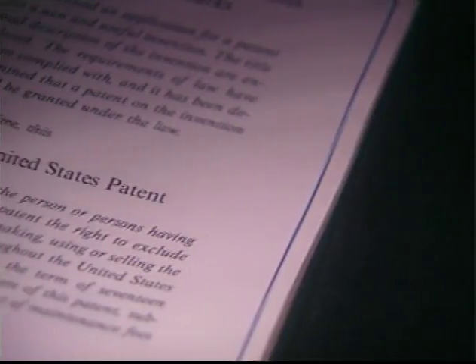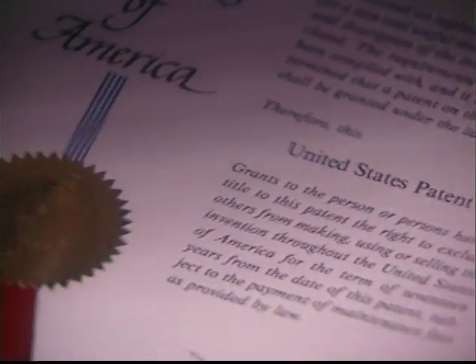The Catphan really had its origins back in 1974. At that time, I had gone to George Washington University to undertake a research project on a new device that was called an EMI scanner, EMI being the first company that made CT scanners. Over the ensuing several years, we developed the concepts that are utilized in the Catphan, and those concepts led to some patents that were issued in 1977.